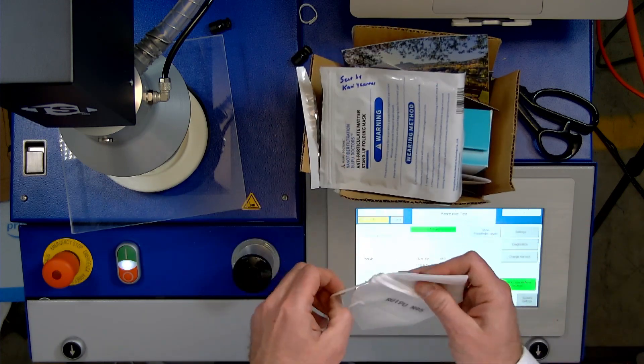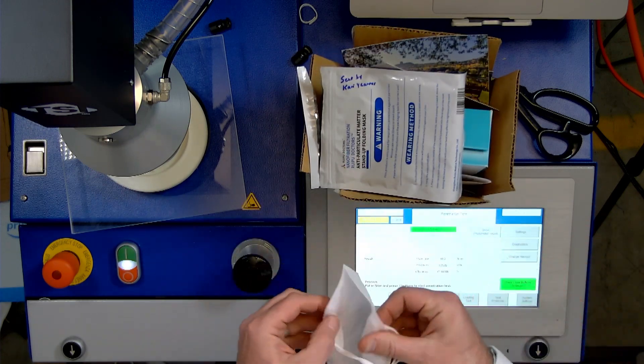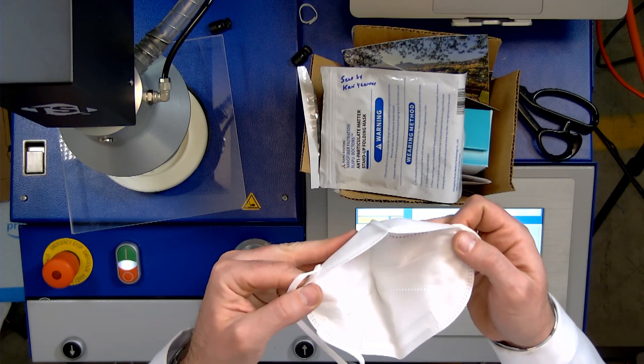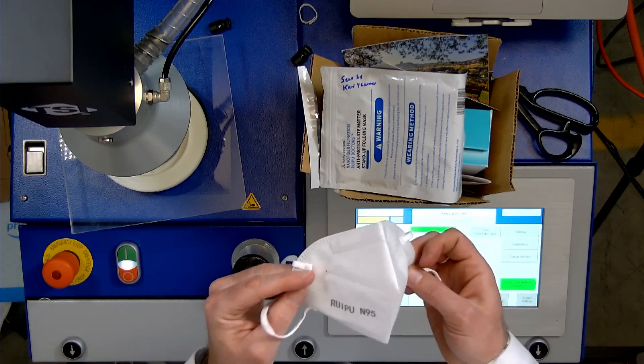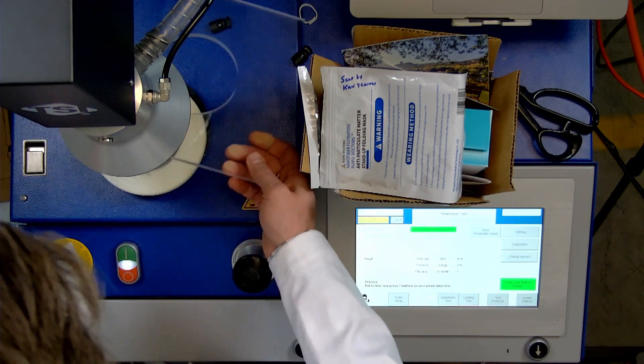All right, let's put this in here. This is from Menards. Super sketchy. This is not an N95. So they're already lying to you. I love this.